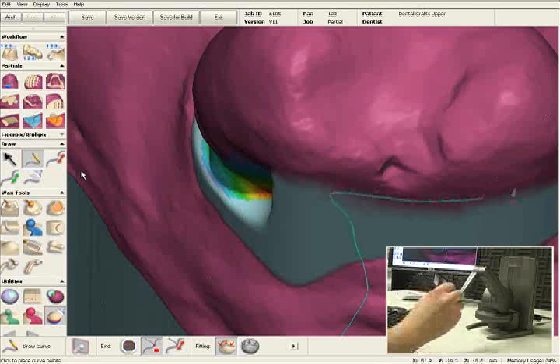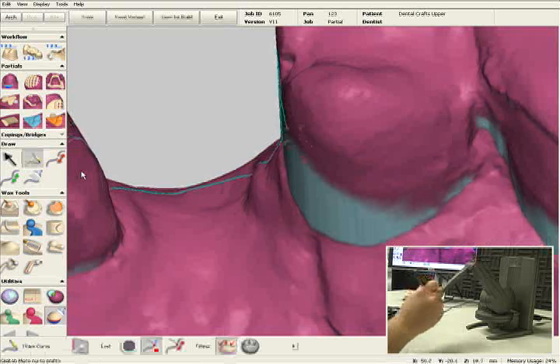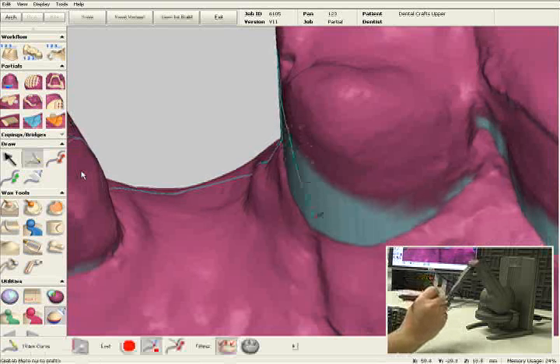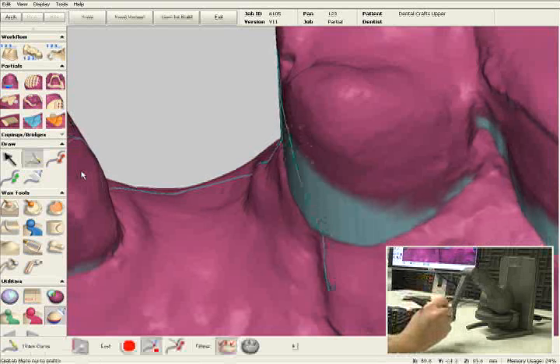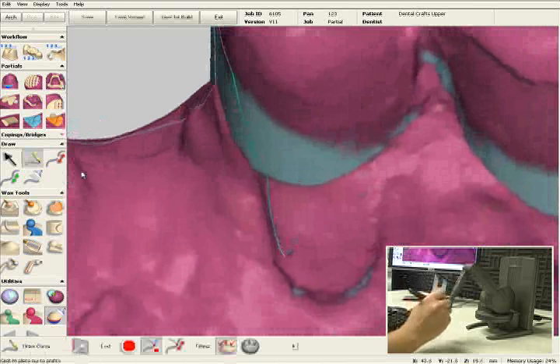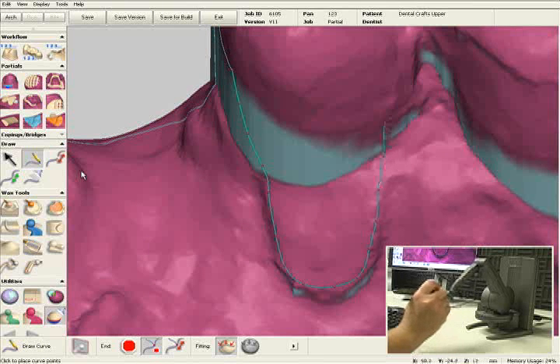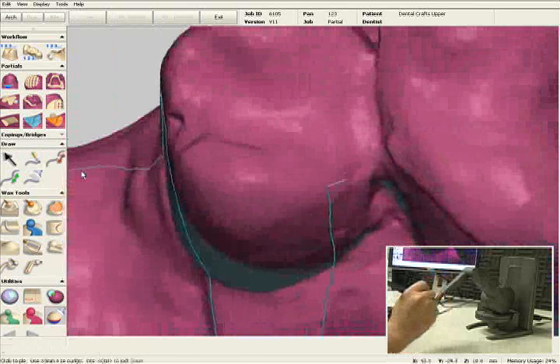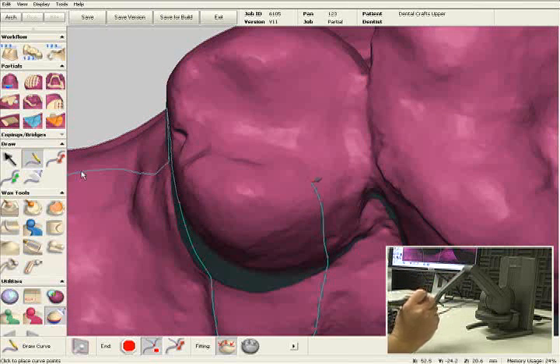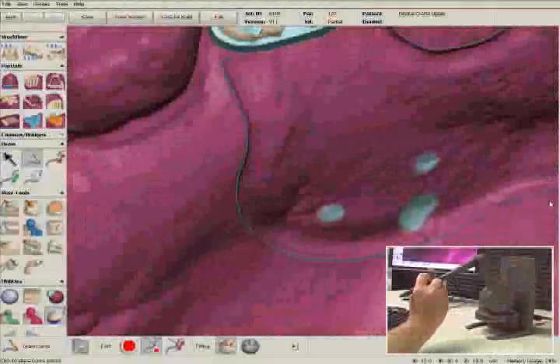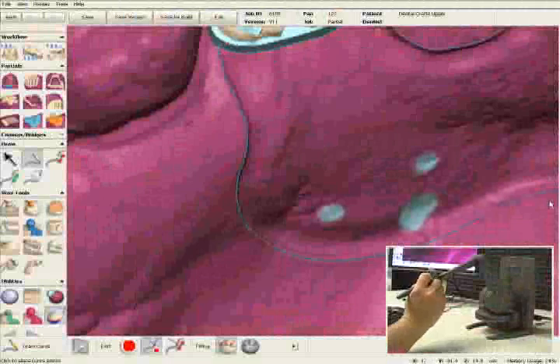We'll have a guide plane here on number 13. Once again, I'll pop through to the inside to go around the bead line, along with the rest seats between teeth number 13 and 14. I'll make my minor connector, and we'll finish off the major connector by connecting the two lines.